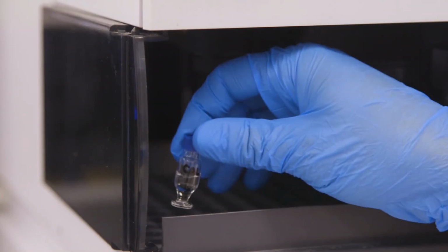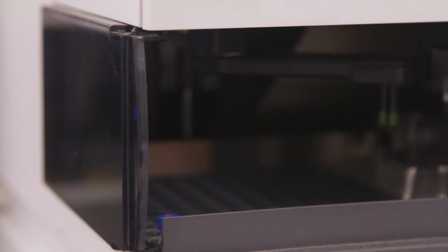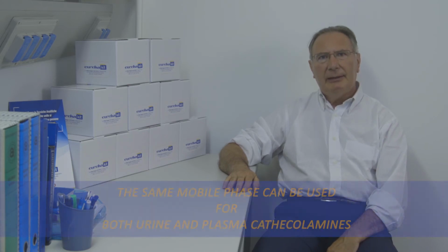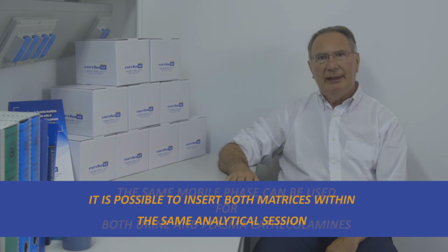We place the vials in the auto-sampler tray starting from the calibrator, continuing with the controls and samples, and starting the sequence. An important point to underline is that the same mobile phase can be used for both urine and plasma catecholamines, so it is possible to insert both matrices within the same analytical session without the need of washing the system.